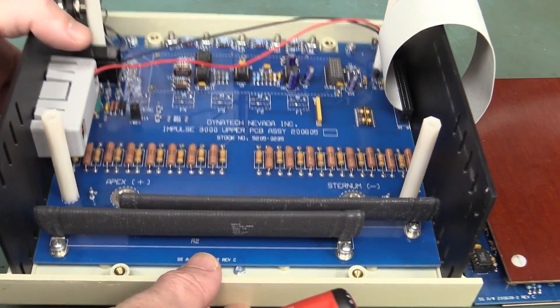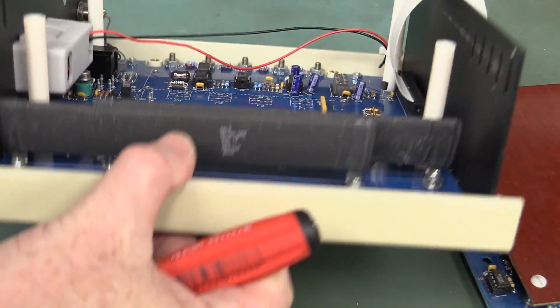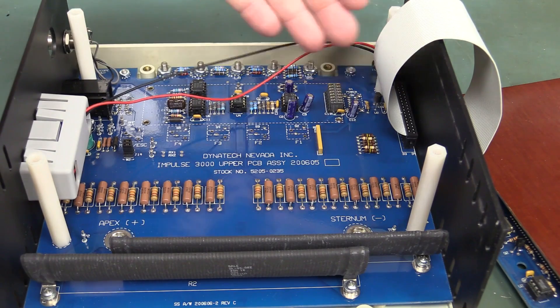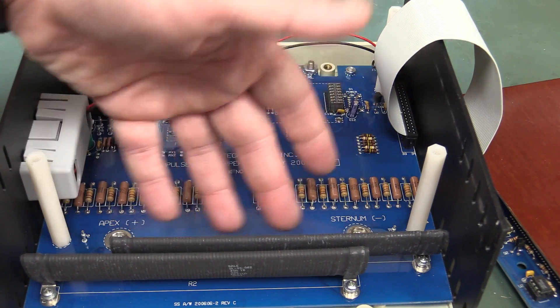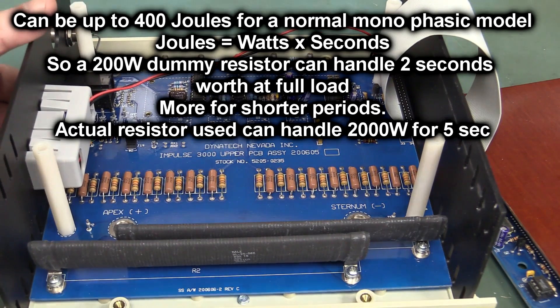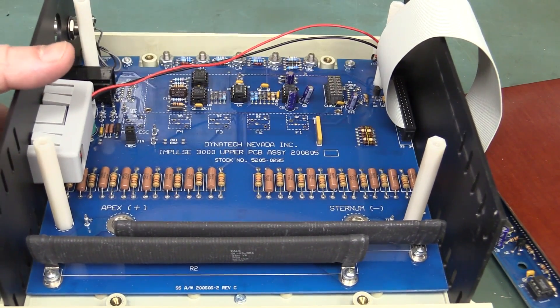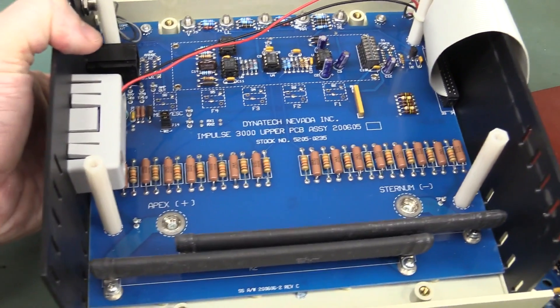This is actually a really nice physical design - look how the apex and the sternum mounts are just like PCB threaded inserts in there, and then they're just screwed into the front like that. Absolutely brilliant. And of course these binding posts up here as well go directly into the PCB - really nice design. It's just going to be a sense amplifier here; looks like we've got a couple of sense op amps over here. You need the big dummy resistors to dump all of the power into this thing. We've actually got two in series across the apex and the sternum - this one and this one in series here.